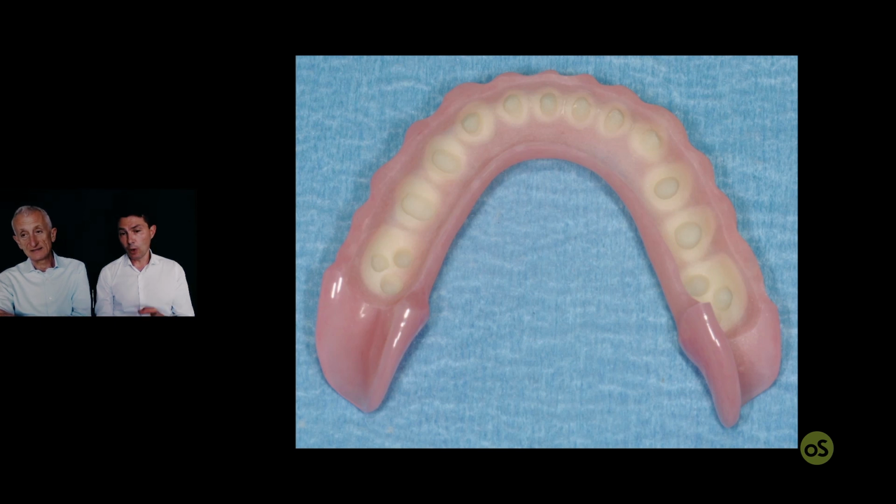I think it's better if you stop immediately after the setup, and when the setup is ready in wax, you try it in the mouth, especially if you increase the vertical dimension or change some parameters. Similarly to when we are doing just a simple denture, okay? Yes. Until we have the correct vertical dimension, lip support, smile line, midline and so on, we will not finish the work, okay? And this is exactly the same. But I think this is not so specific for our technique.